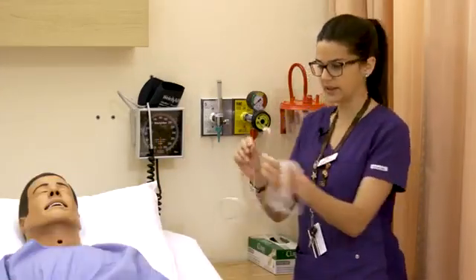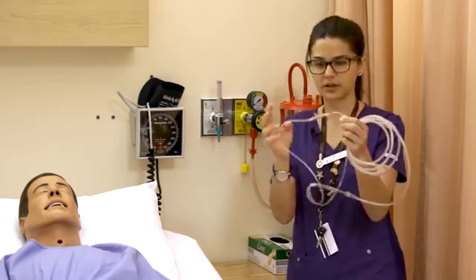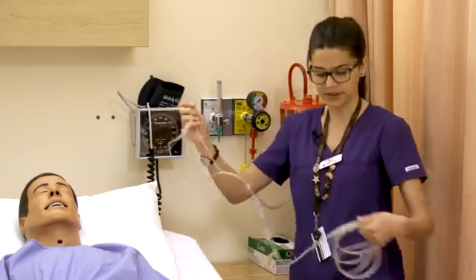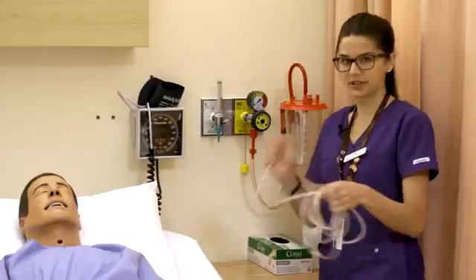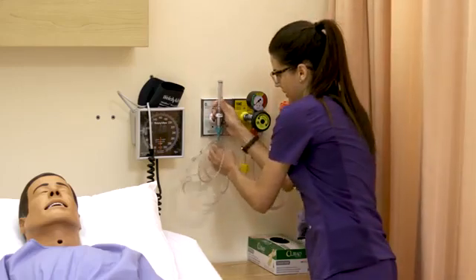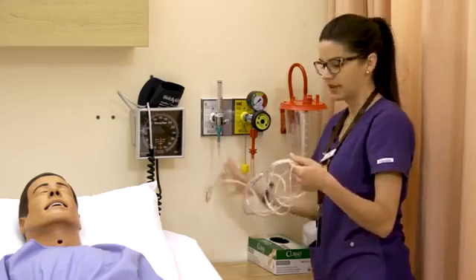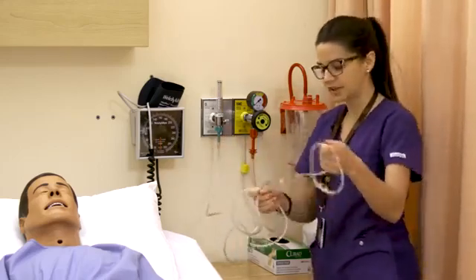Nasal prongs have that fork or prong look, and you'll notice they're a little bit curved. We want the curve to go into the face — not out toward the tip of the nose but into the face on the person. We'll hook up our nasal prongs by attaching this end to the Christmas tree adapter. Stabilize it and firmly press it on, then agitate or pull on it a little to make sure it doesn't break off easily — because you wouldn't want to walk away with it disconnected from the oxygen while it's on their face, thinking oxygen is being delivered when it really isn't.